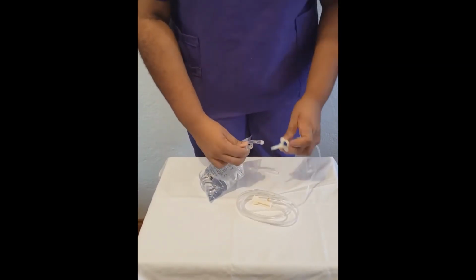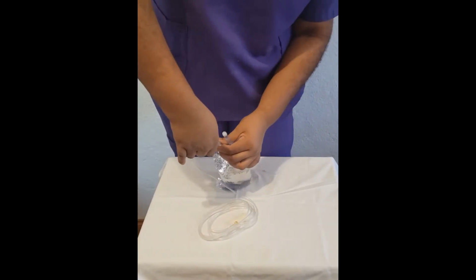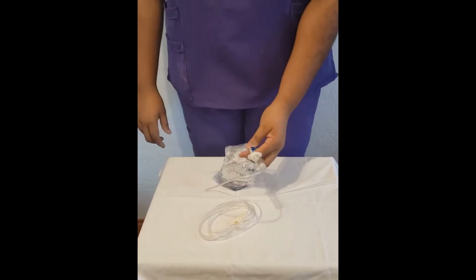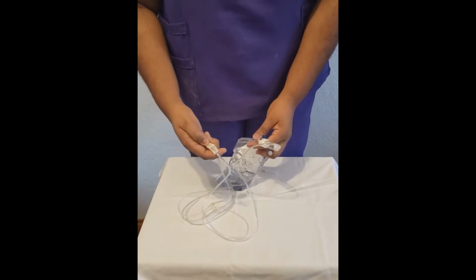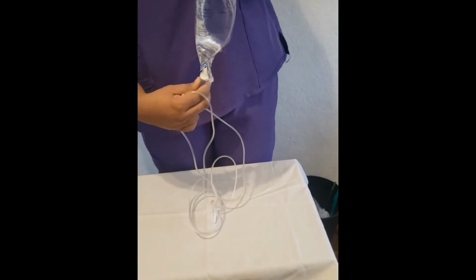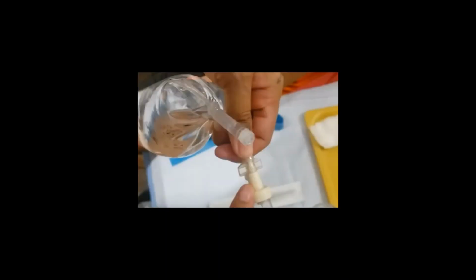After screwing off the protector for the infusion port, you spike the bag with the dropper spike. When it is well secured, the roller clamp is closed off to prevent the flow of fluids in the drip chamber. The drip chamber is squeezed to allow a fill of 1/3 to 1/2 of the chamber with fluids to prevent air from moving down the tubing. This must be done well to avoid introduction of air and foreign matter to the closed system.